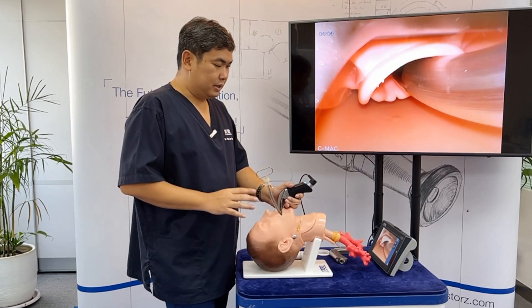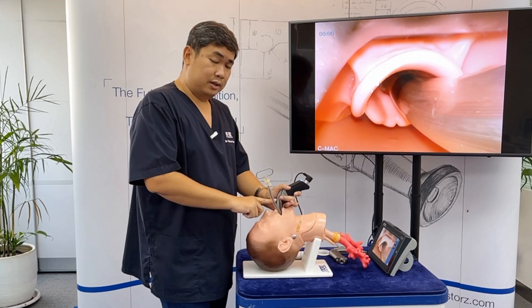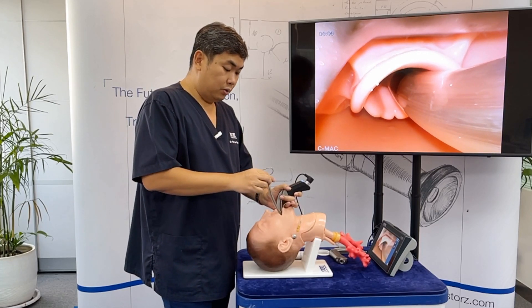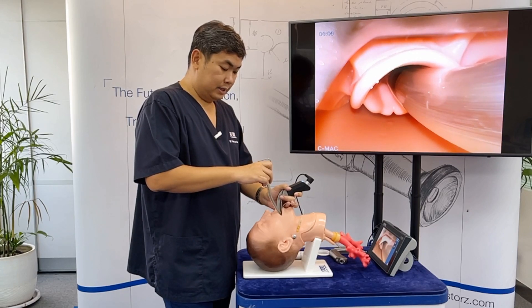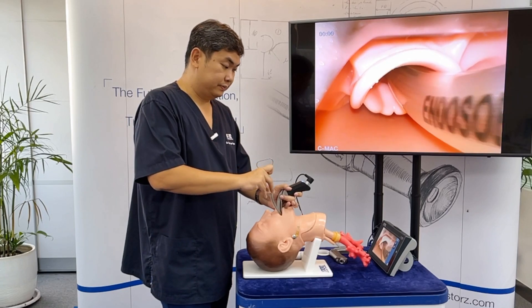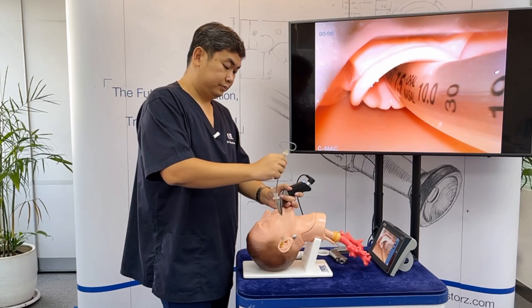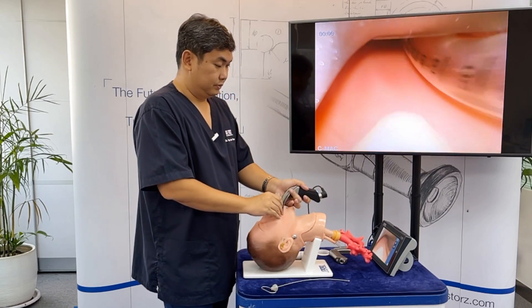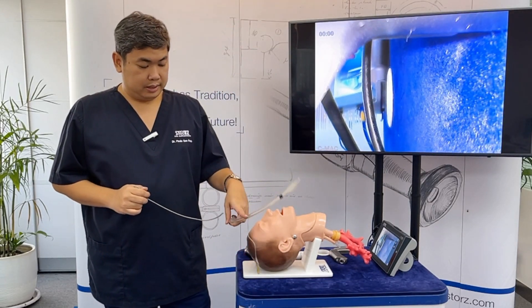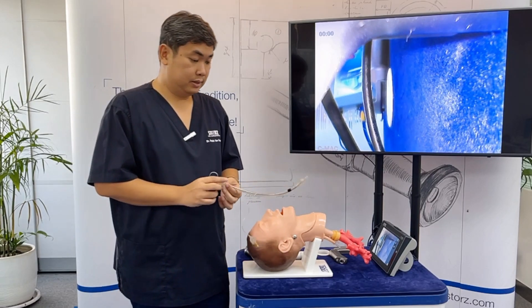Once you pass the vocal cords, do not push the ET tube down together with the stylet. You can push the ET tube down while keeping the stylet stationary, since most stylets are rigid. Another technique is twisting the ET tube as you push it down.